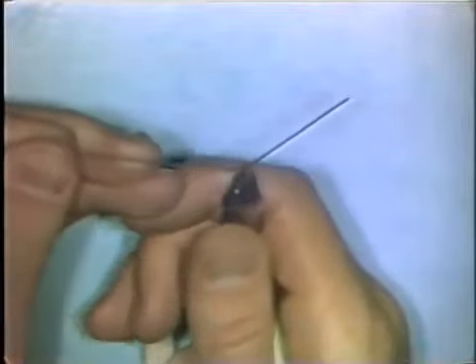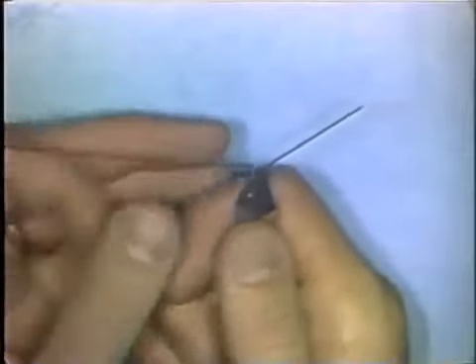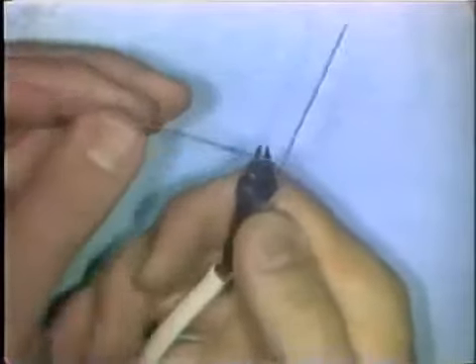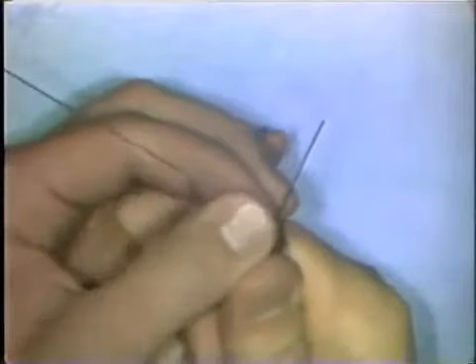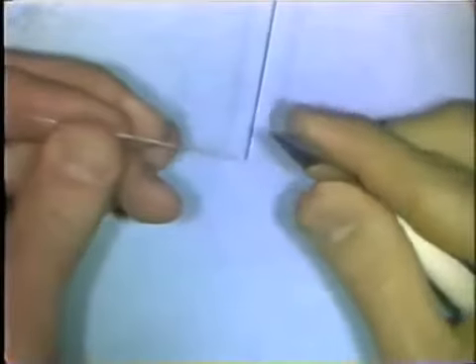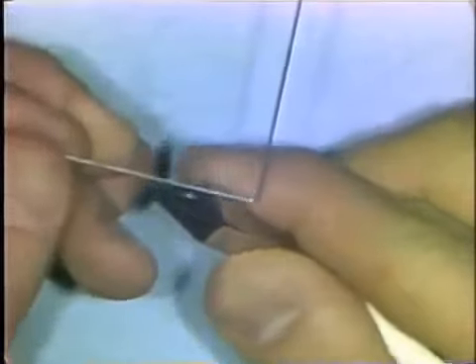Check it on a work model that you're constructing, then place the beaks back in place and complete the 90-degree bend, again pushing directly on the beaks of the plier and on the wire itself. The wire for a 90-degree bend, if it's formed properly, should go straight into the bend and straight out of the curve.